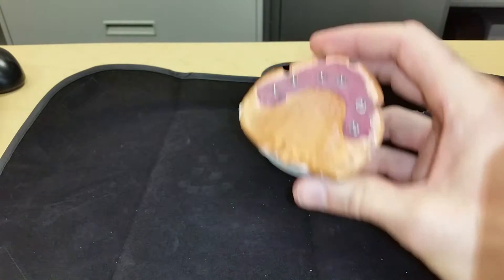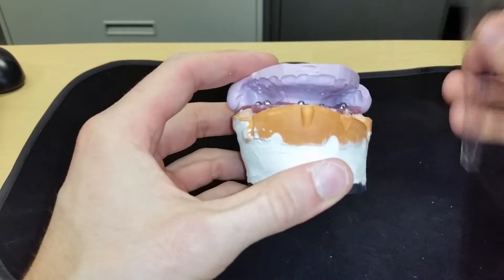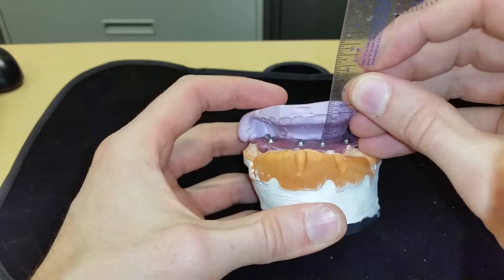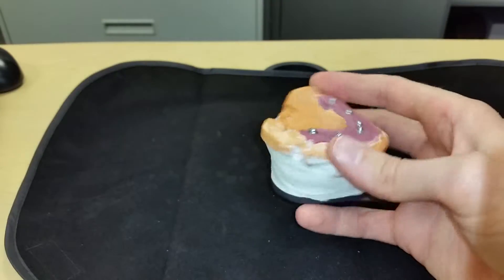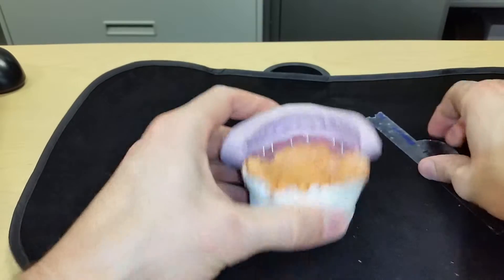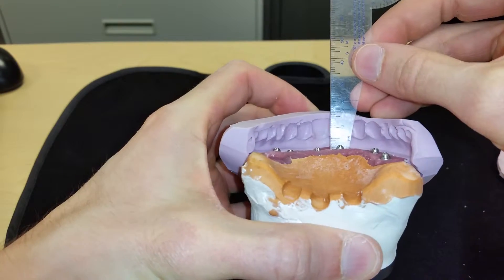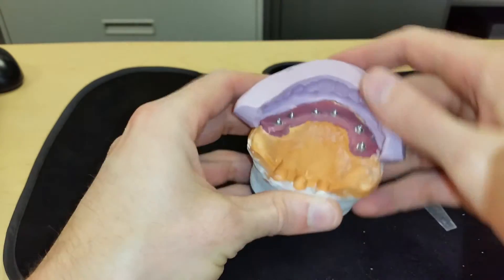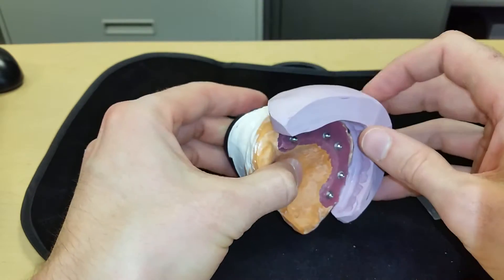Same thing on the maxillary cast — I made silicones when the patient's provisional hybrid is in place. You can see we're at about 18 millimeters to the incisal ledge, and right at about 15 millimeters. So I have a little bit more room in the mandible. I hope that really helps provide some insight as to how you assess restorative space and how to articulate your casts.